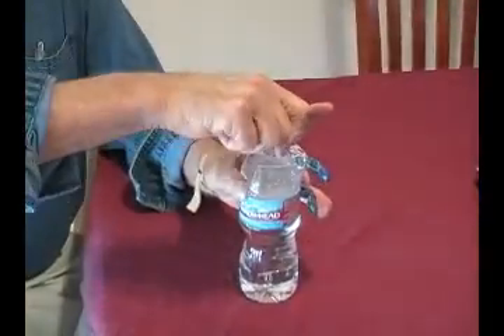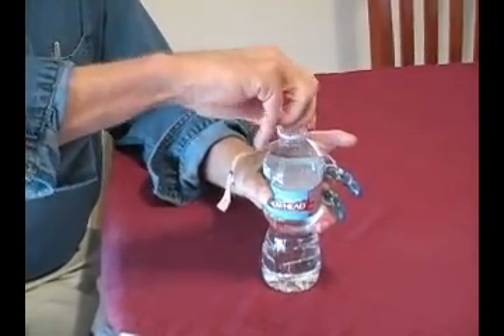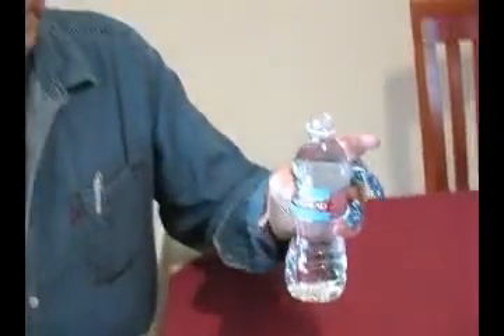Because this is an active device, you will be able to use it to grip, to keyboard on a computer. It's interesting how much sensitivity is transferred to the stub portion.